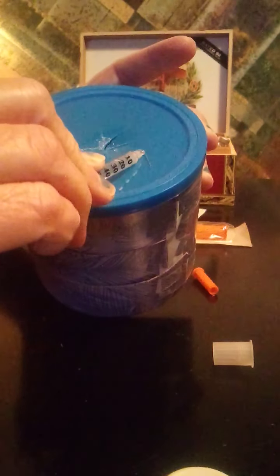I'm going to store the plunger separately from the needle. Sometimes our landfill waste ends up in places like Mexico City or parts of Asia where children go through the trash, and they may be prompted to sell this kind of stuff. Even in the United States, you don't want syringes to be reusable. So I bend the needle down and store the plungers and the syringes in different containers. The plunger can actually go in the regular trash. That way they're separated and the bent needle can't be reused.